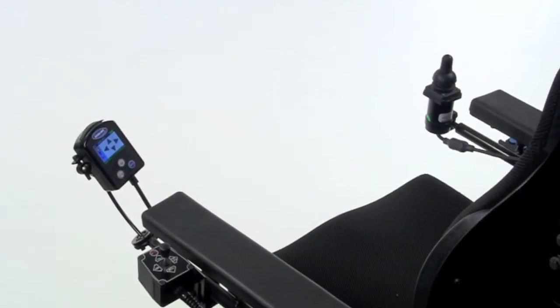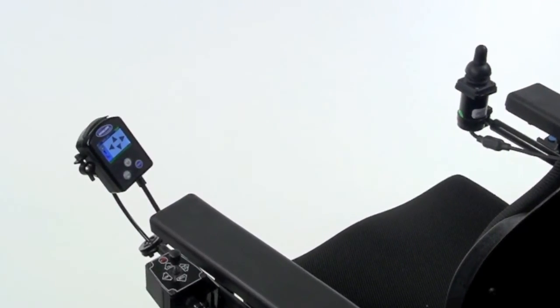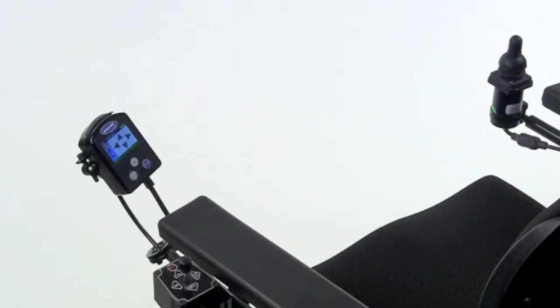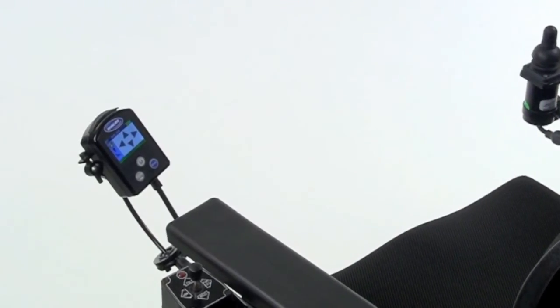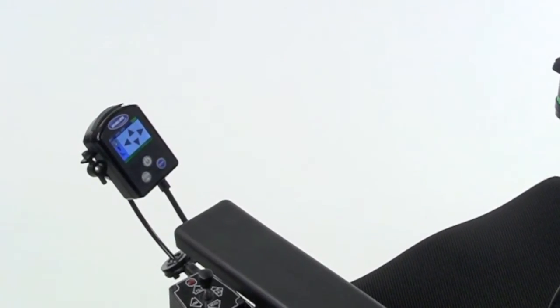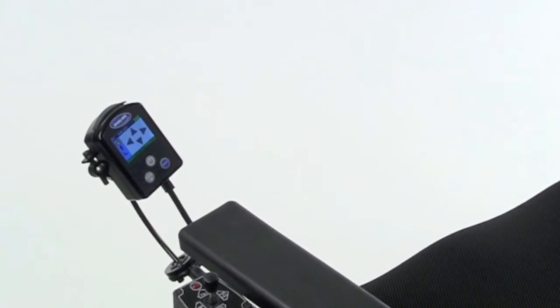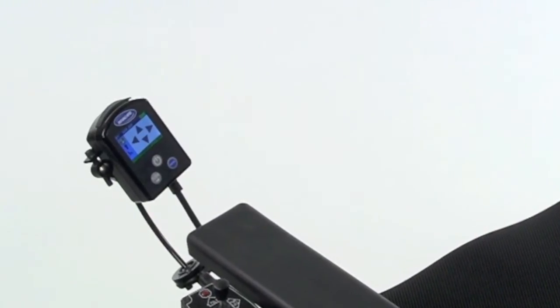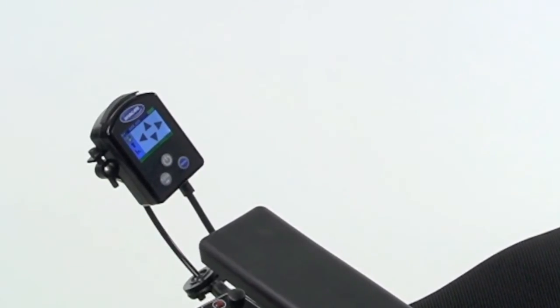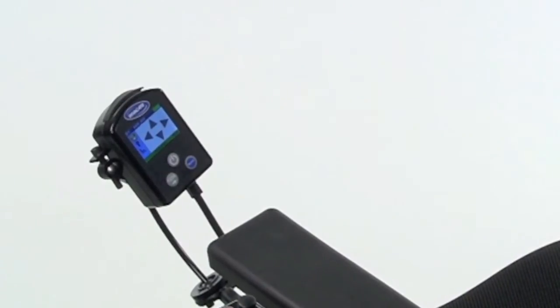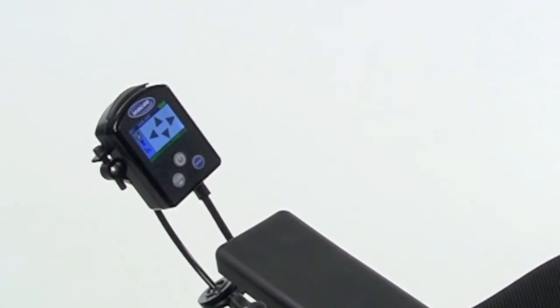If you ordered the mouse emulator as a service part and need to add it to your Invacare Power Wheelchair with Mark VI Electronics, you have just a couple more steps. After you've made your programming changes, it's time to pair or synchronize the USB mouse dongle to the mouse module so the consumer can use his or her driver control as a mouse.